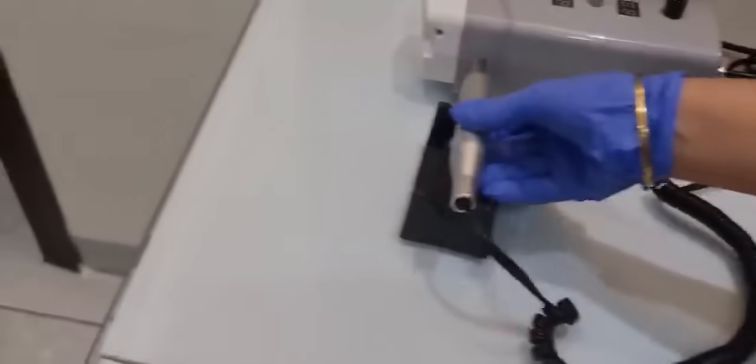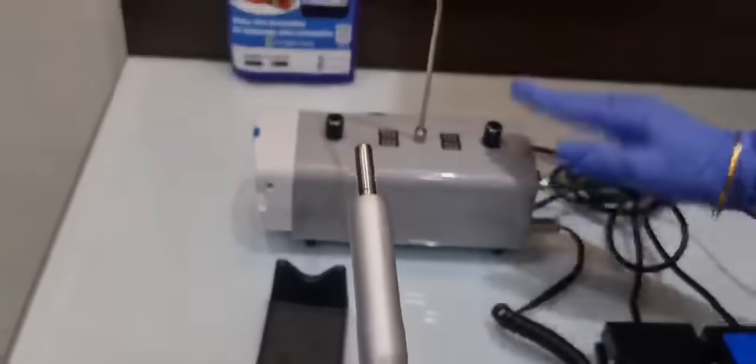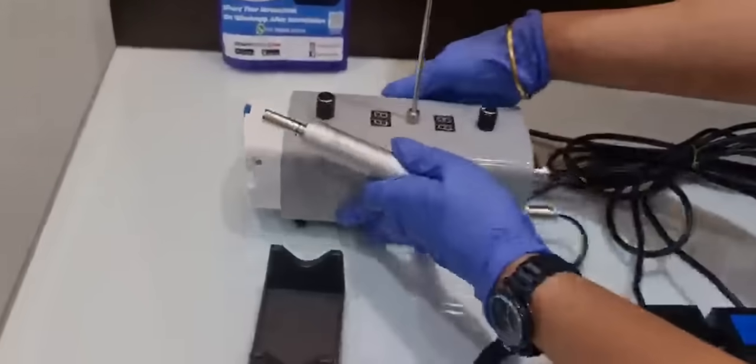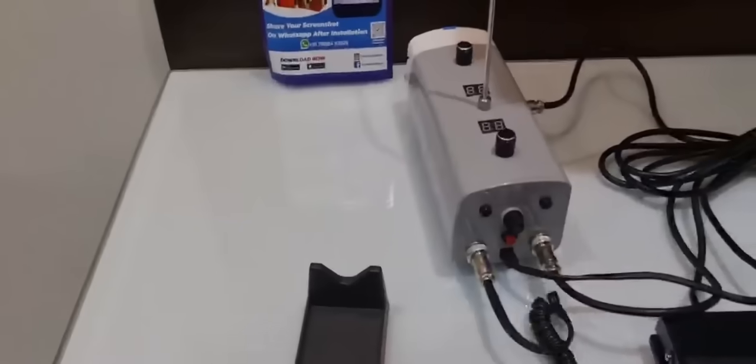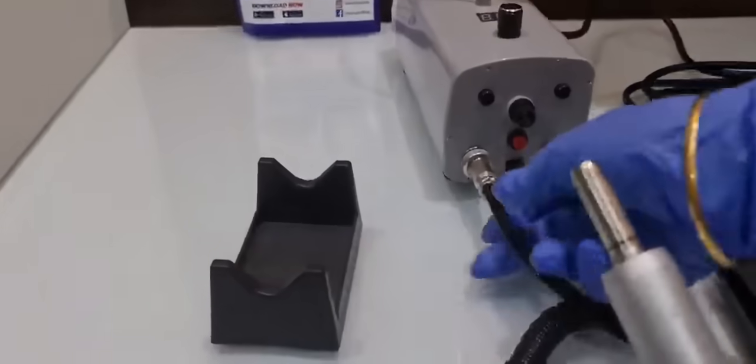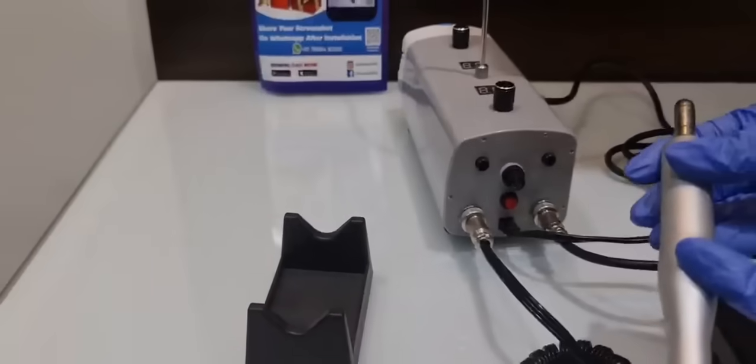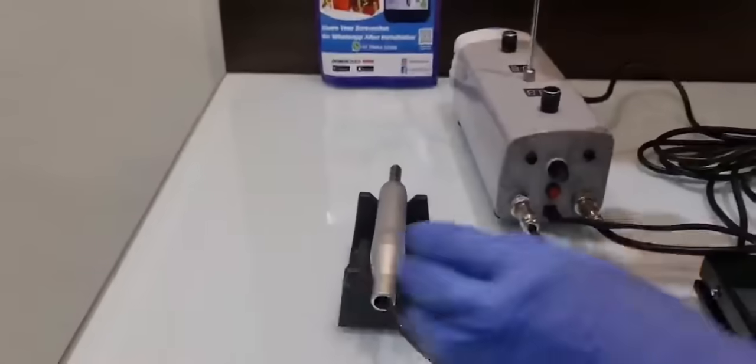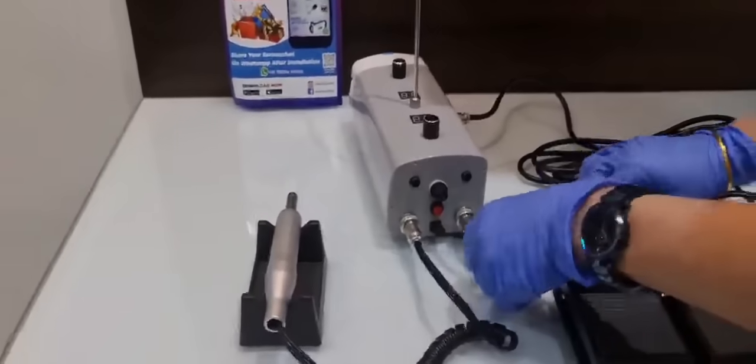This is the motor which is attached to this control panel. It is attached on this side. On the very left corner we have the cord which attaches to our motor.